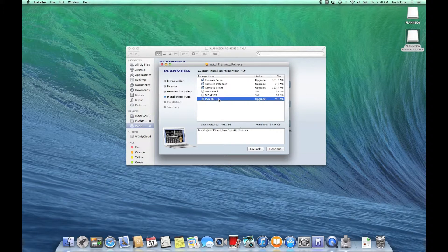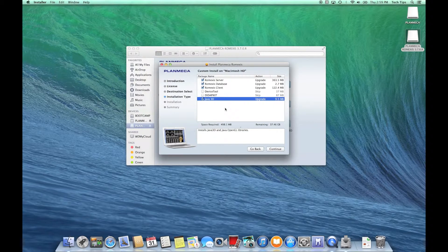So here's your mental snapshot: these are the components you'd want checked when installing Romexis on a Mac server. Romexis Server checked — that installs the services needed for this computer to act as a server. Romexis Database checked — we're storing images here. Romexis Client checked — for troubleshooting, so we can actually open Romexis on this computer. And Java 3D checked — which gives us 3D image functionality.